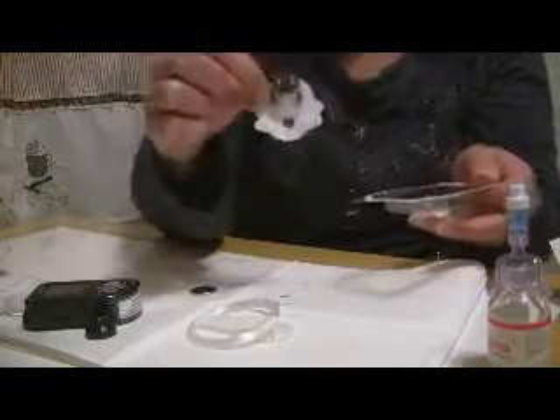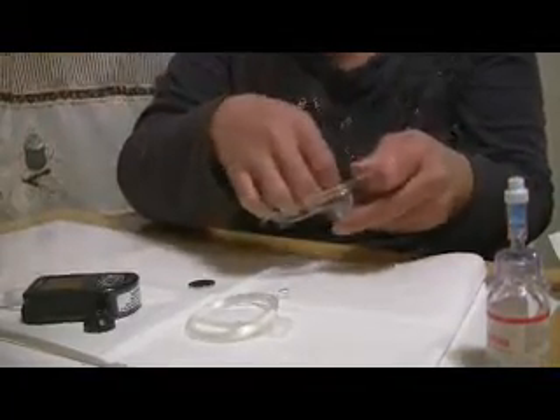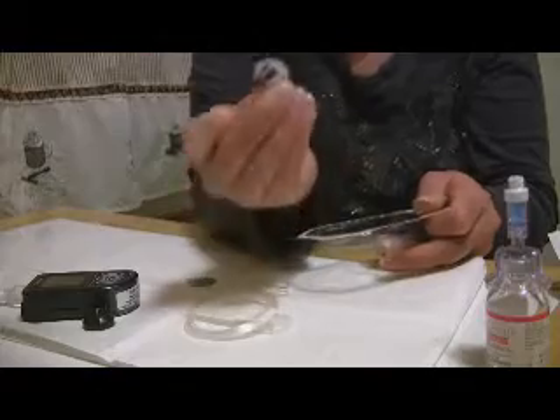While this is going on, I will open up the Silhouette pack so that I can get my line out that I'm going to use tonight, because every time you change your cassette you're going to be changing the line. We don't need this needle — that's only when you're changing sites. So I'll go ahead and put that to the side.